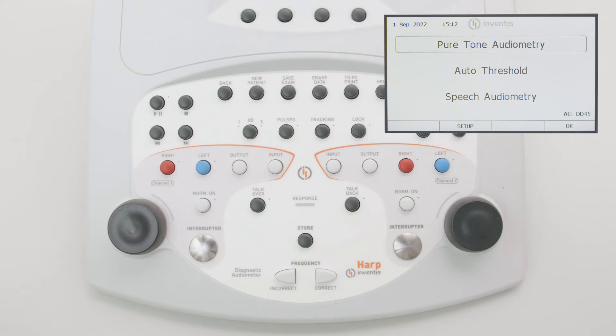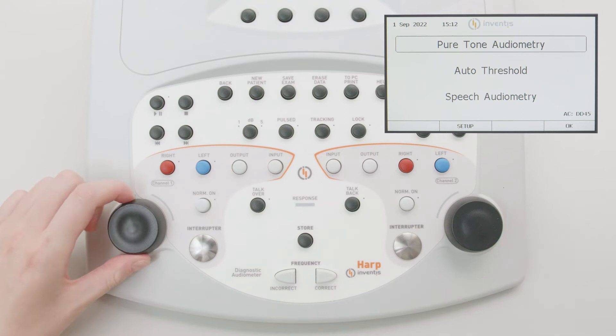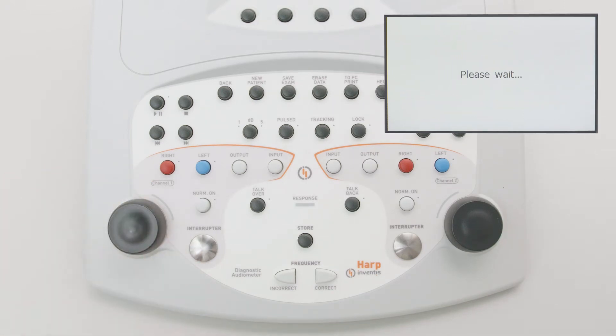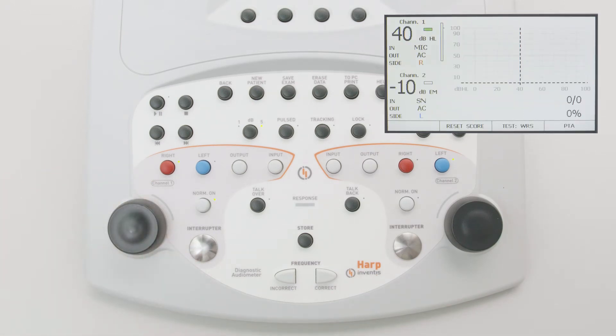During this video we will have a look at how simple it is to carry out speech audiometry using the HARP audiometer. To run a speech audiometry test, the related window must be opened from the main menu by rotating the left knob. Select the speech audiometry test and press the left interrupter or the OK navigation button to confirm the selection.